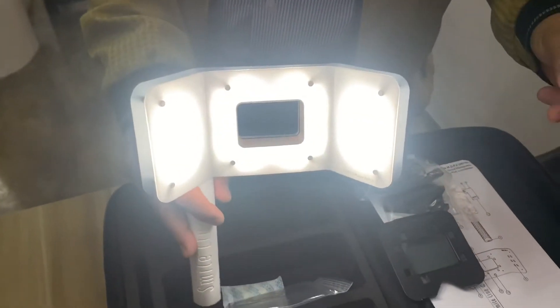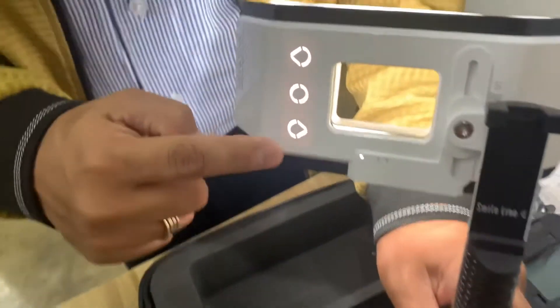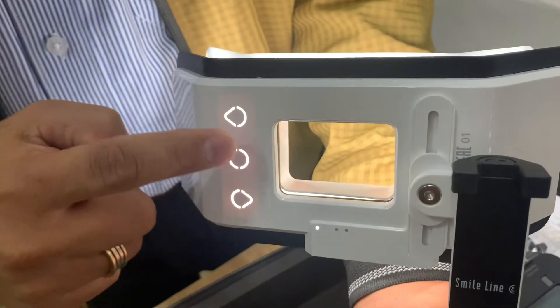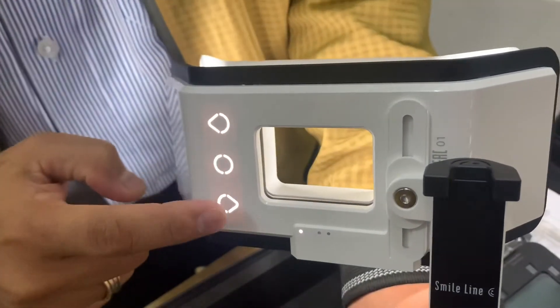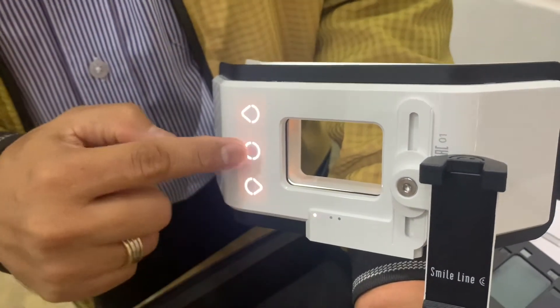We can try also the diffuser — that's how it is, and you can see you can adjust it there. There's also the level of charge indicator: one, two, three. So yeah, we can have it demonstrated.